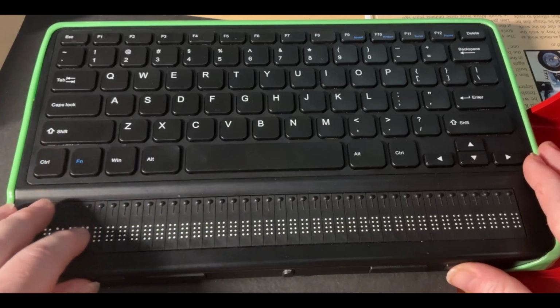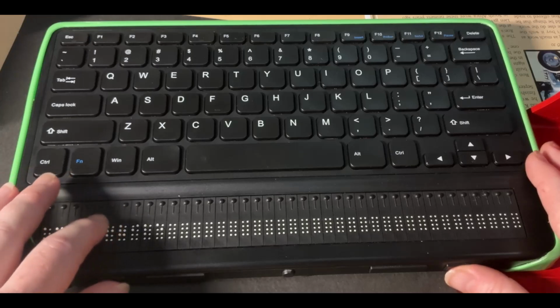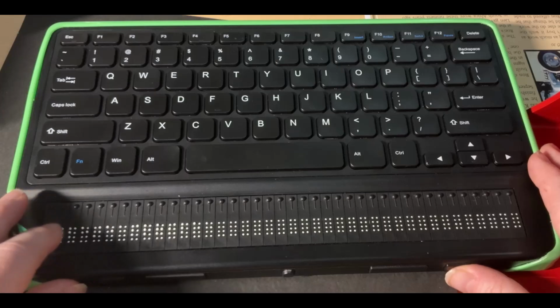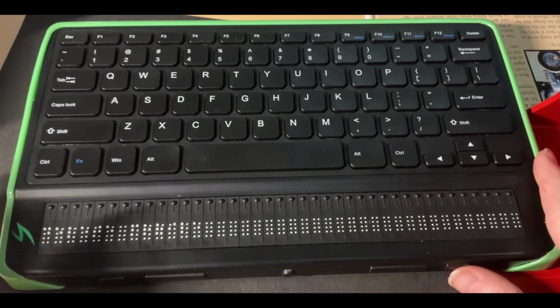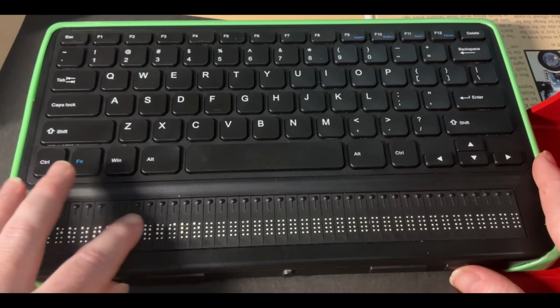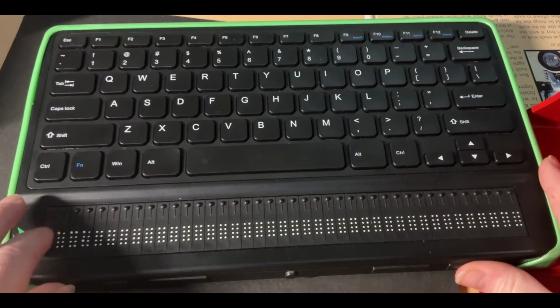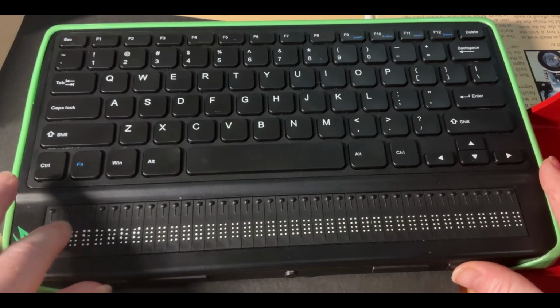But so now I'm moving forward with my next thumb key where I could add another profile. I could configure a profile. I could choose anything like that. Now, this is what I meant by I could have gone back and configured my default profile. I can delete a profile is another option here. And again, I'm going through the menus by just pressing my next thumb key. And then the next option is back. So I could go back in the menu.